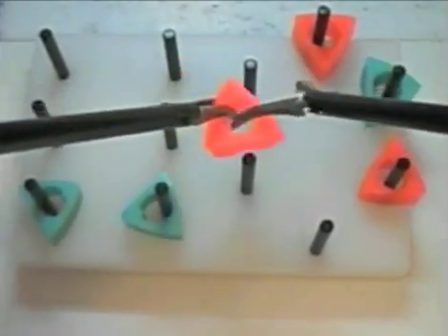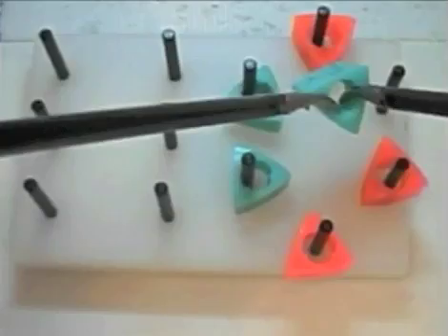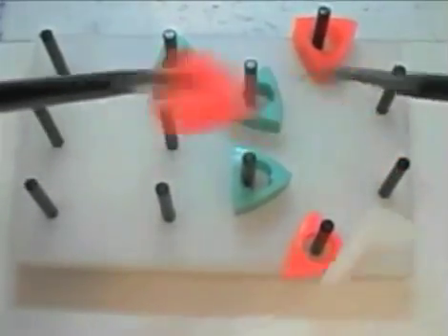Once all the pegs have been transferred, grasp them with the dominant hand, transfer it to the non-dominant hand, and place them on the opposite side again. If you drop a peg out of the field of view, you cannot retrieve it.